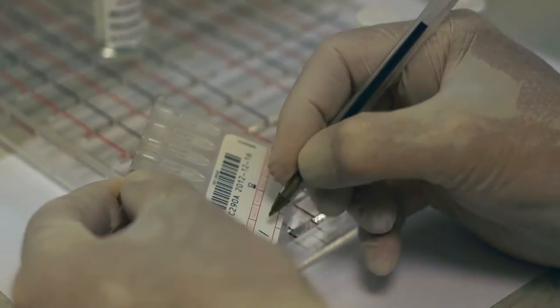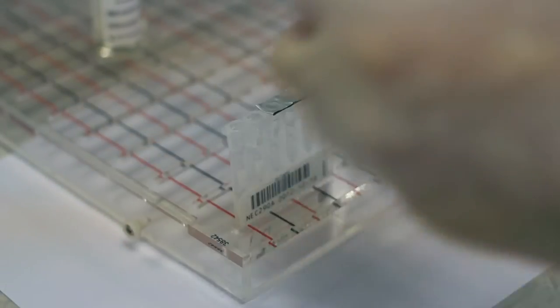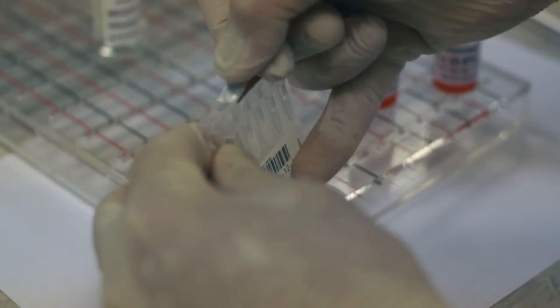First, we identify the microtubes that will be used for each sample. The foil covering for the microtubes that are being used is peeled back.